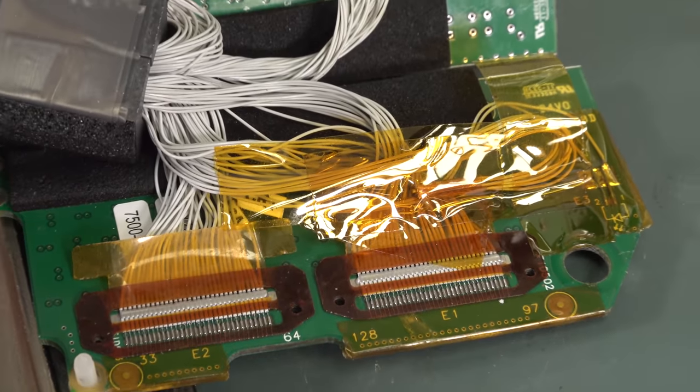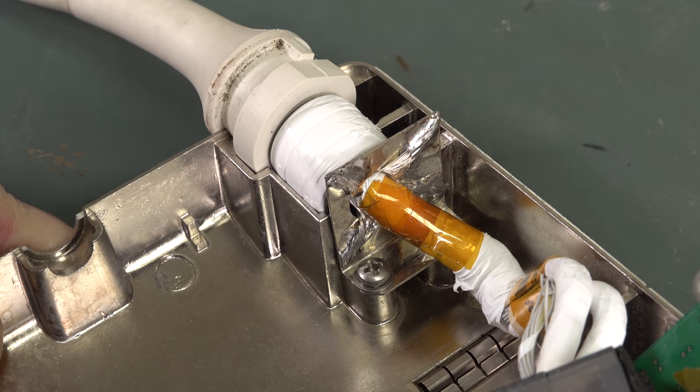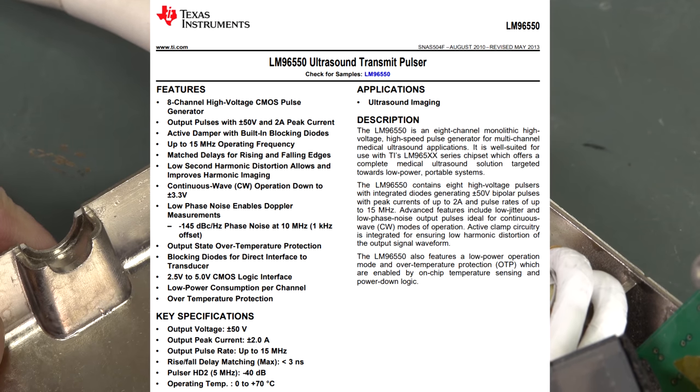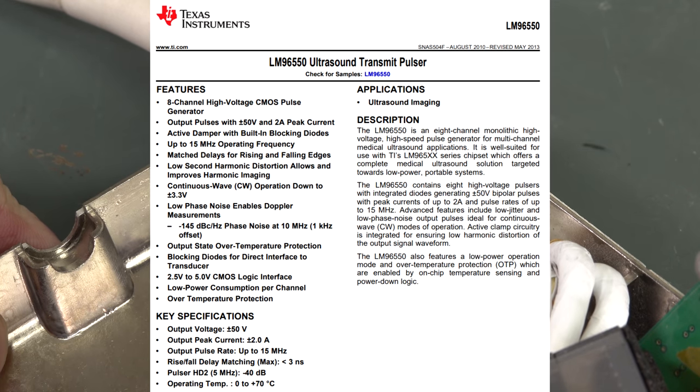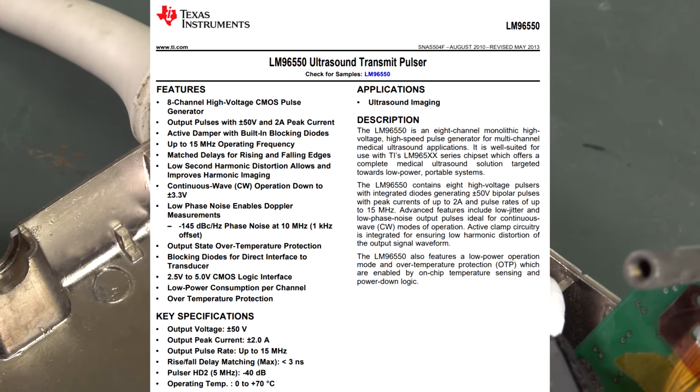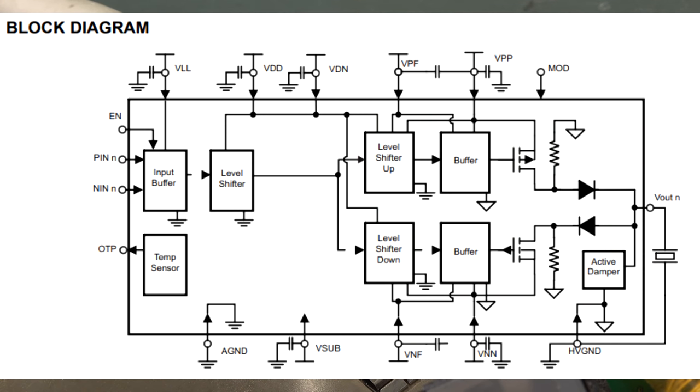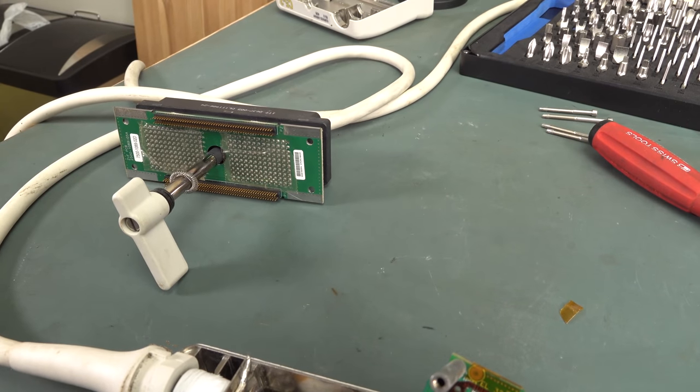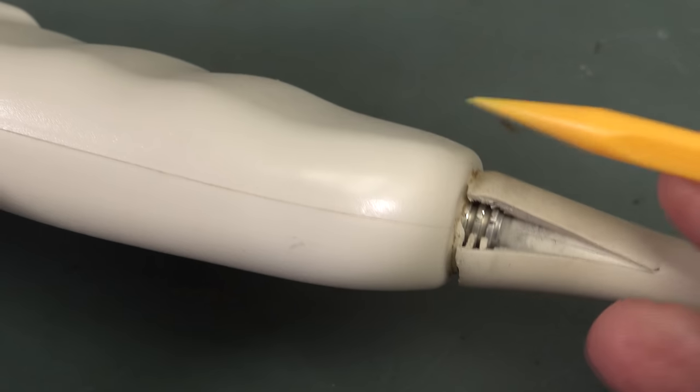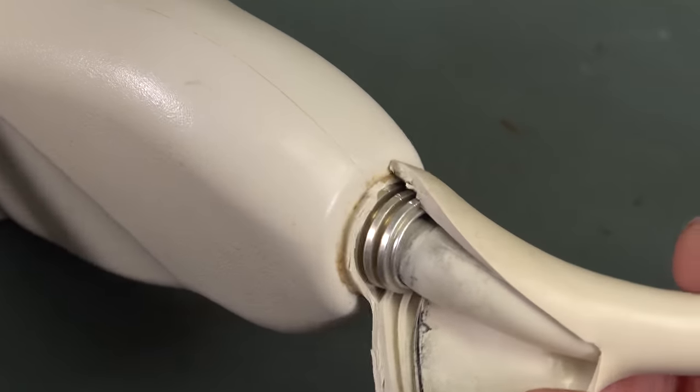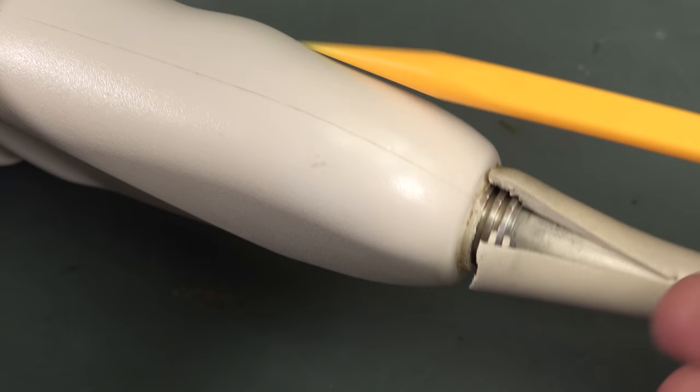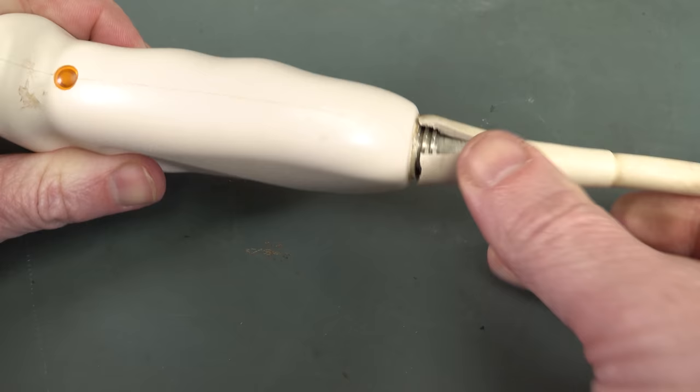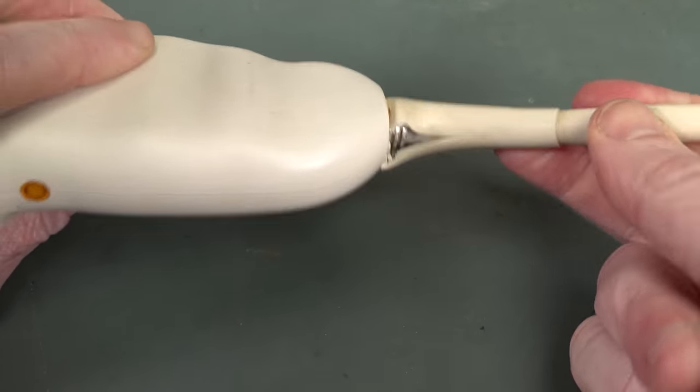Everything else is just really a direct interconnect. They're very serious about their shielding, and of course you have to be. Although we're not talking really high frequencies, only sub-5 megahertz here, you've got to understand these are powered ultrasonic transducers. These things operate - I showed a data sheet in the previous video - like 50 volts at up to 2 amps driving capability. When you multiply that by lots of channels and huge big antenna cables coming off here, all this is going to be metal inside as well. That's going to be shielded.